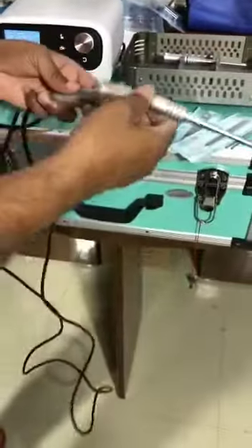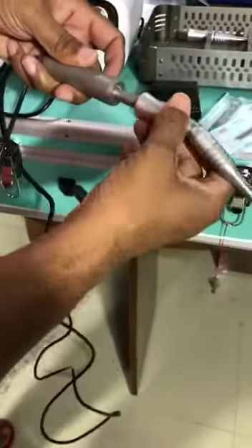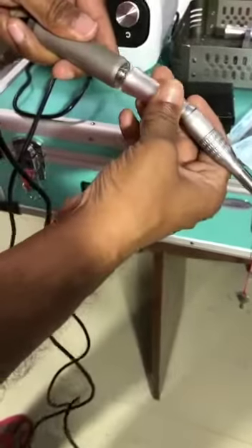This is an angular handle. This is a pin. Press it to lock it.